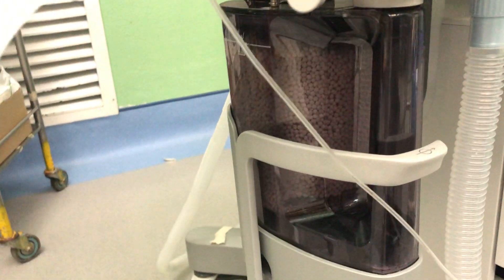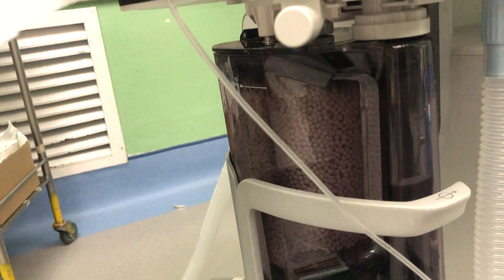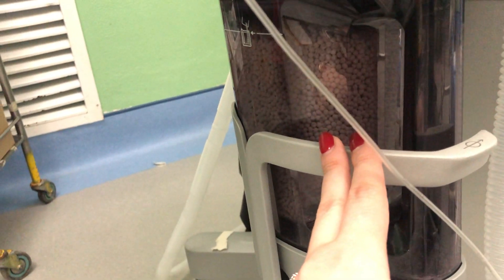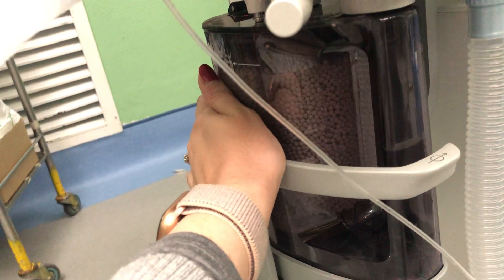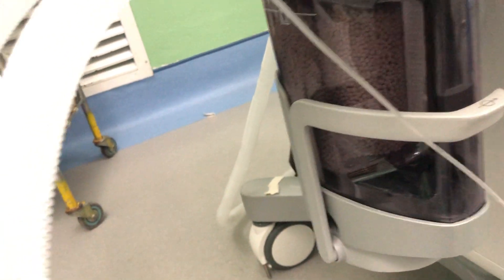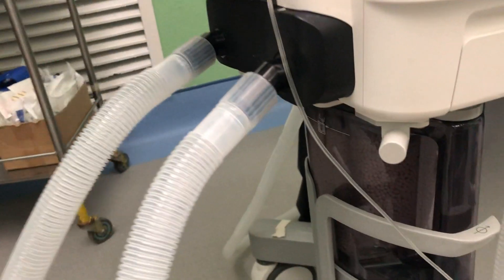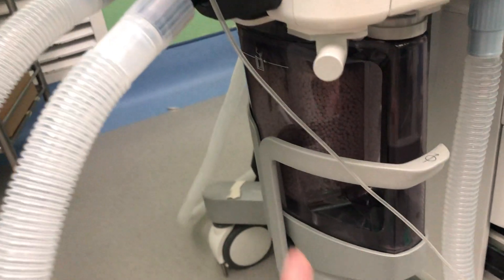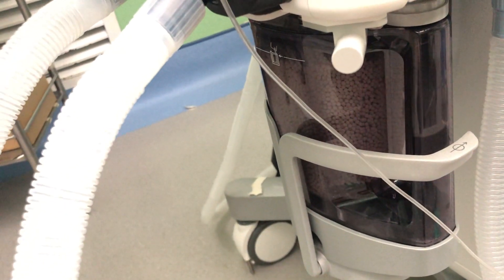At the bottom of the machine is the soda lime canister — you can see it has a slightly purple color. The soda lime granules absorb the expired CO2 from the patient and trap it there. A chemical reaction turns the granules purple once they've absorbed CO2, and that reaction also releases heat and water. We use this because oxygen, anesthetic agent, and nitrous oxide can all be recycled and reused by the patient in a closed circuit — but CO2 must be removed.